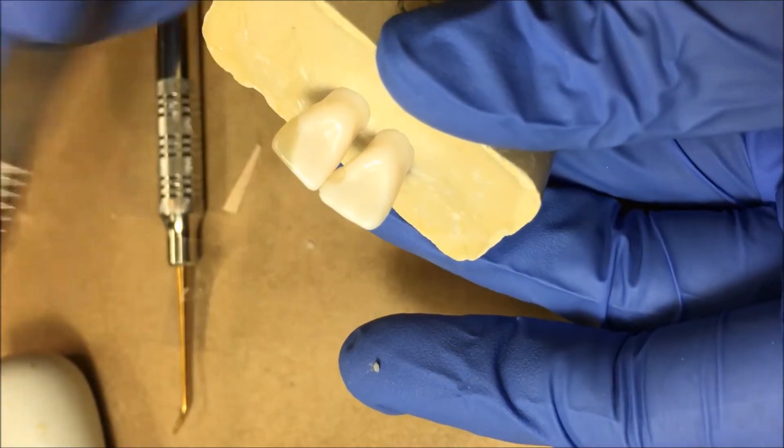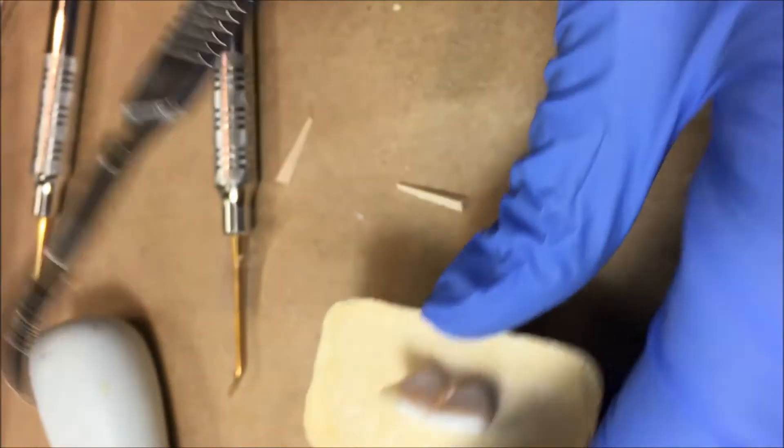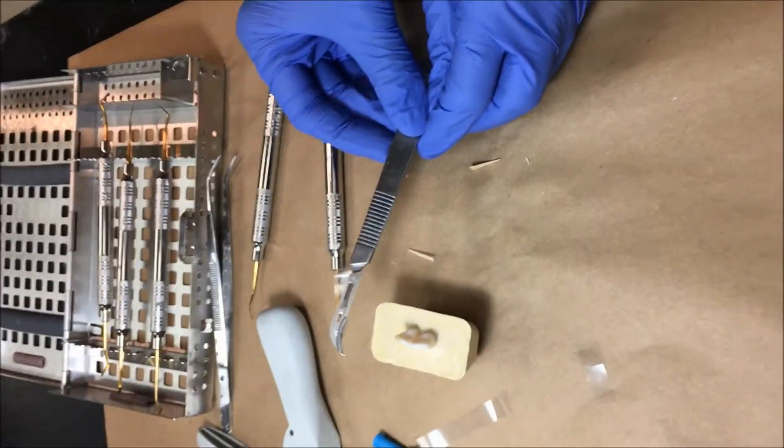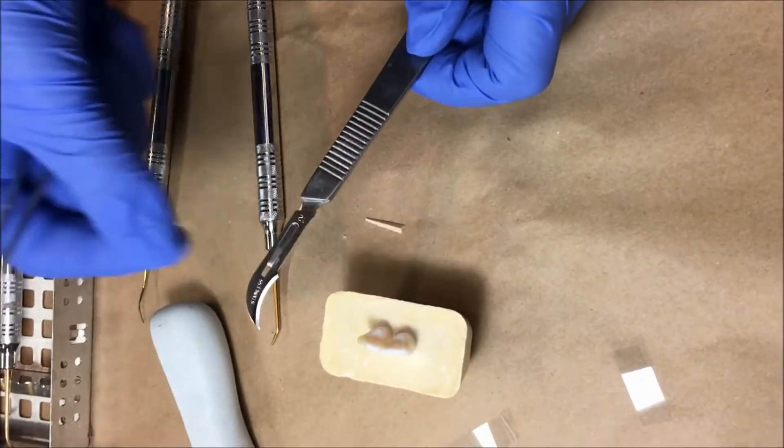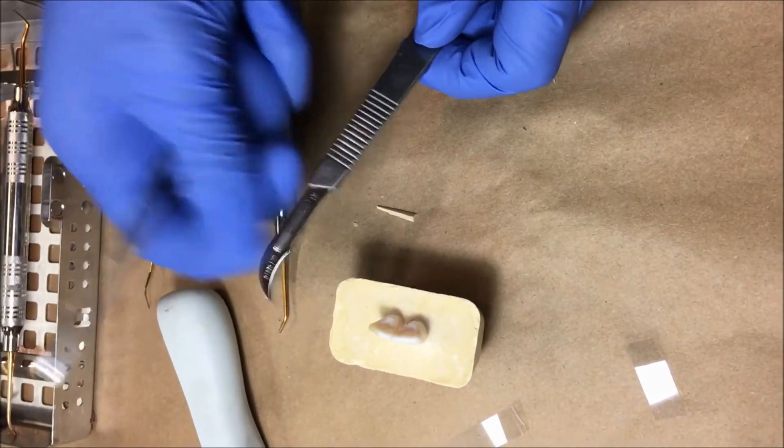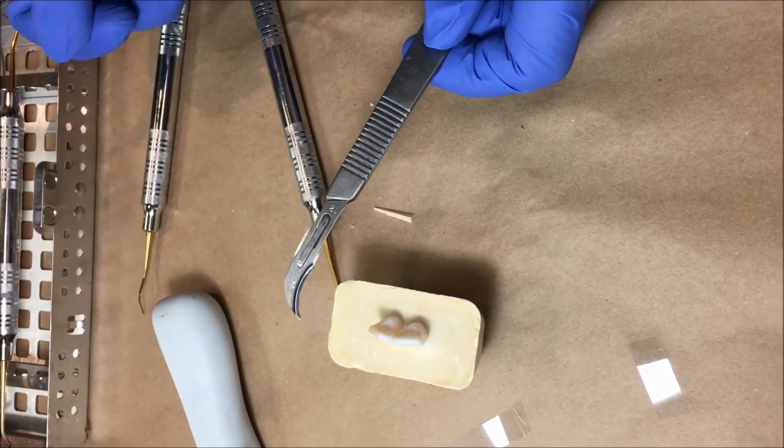Okay let's pretend you have a ton of flash here. So this is that 12 blade. When you're placing this 12 blade on if it's clean you can go ahead and click it on with your fingers. That's fine.